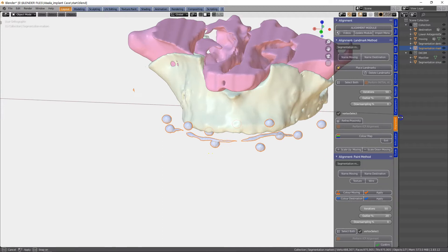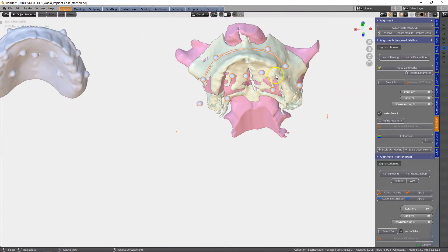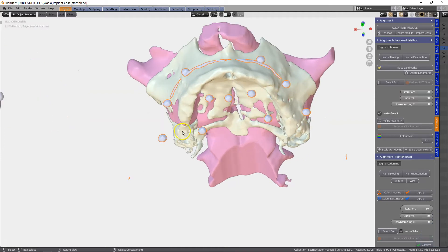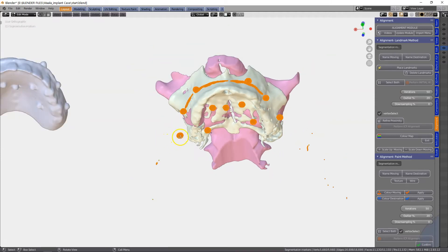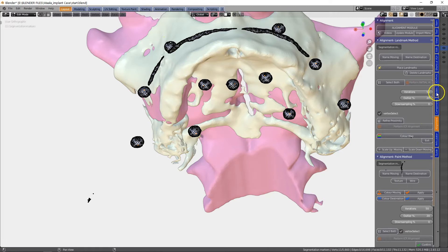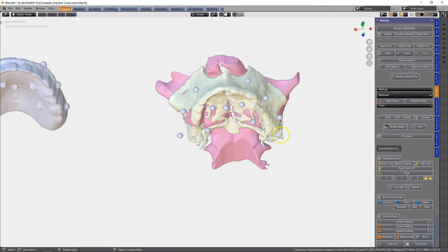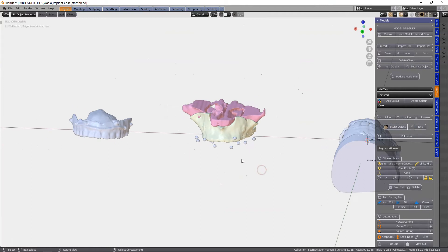Alright, this is what I want to see. But we don't need all of the other stuff with it. So I'm going to go edit mode, select these markers, left click. And I'm going to go in the model designer and just click on clean. That gets rid of all of the other stuff. That's perfect — that's exactly what I want to see.